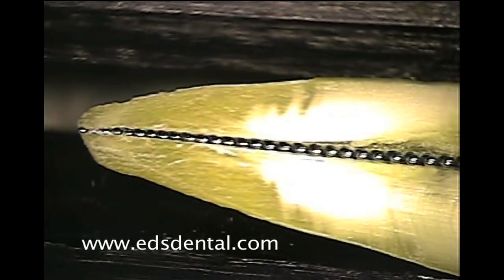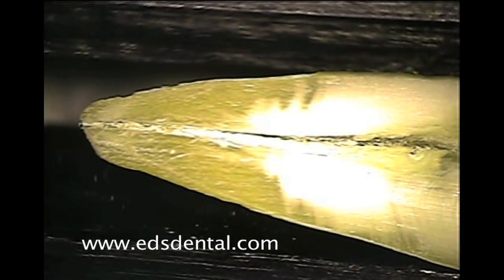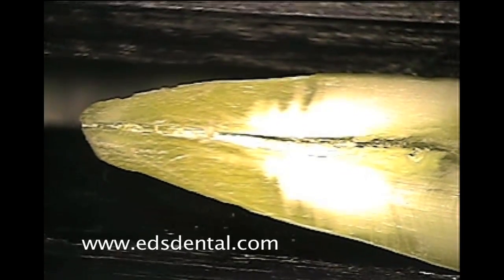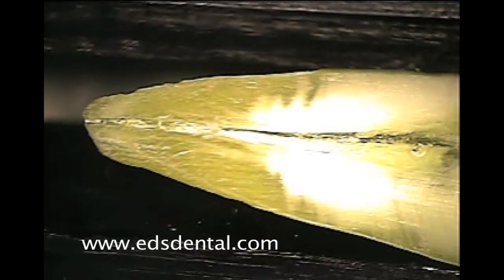This simple demonstration validates the usage of reamers both unrelieved and relieved over the traditional use of K-files.